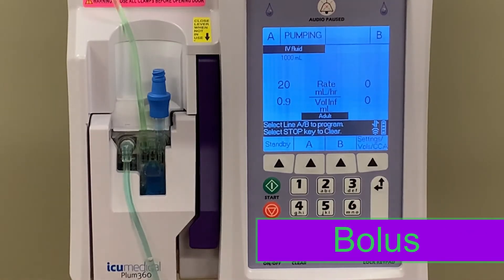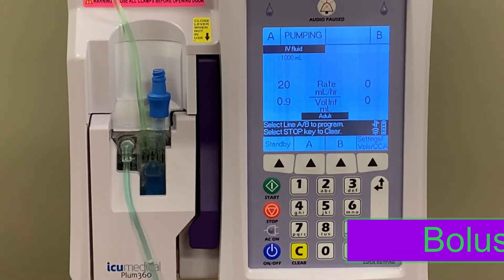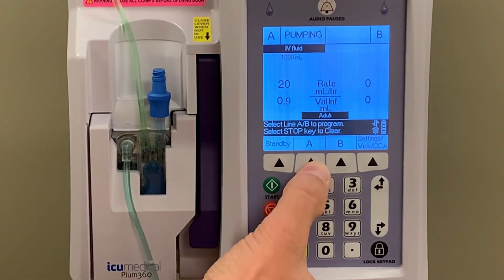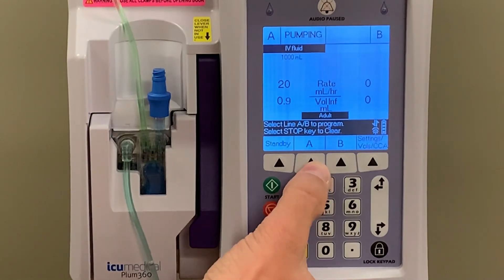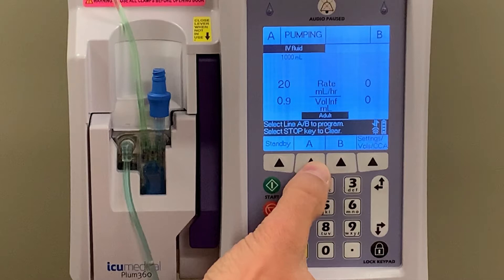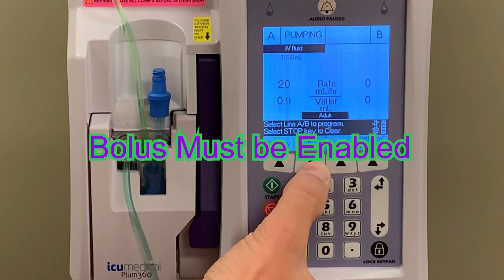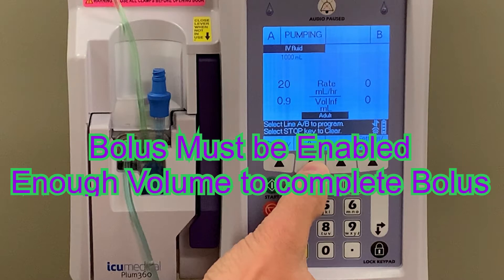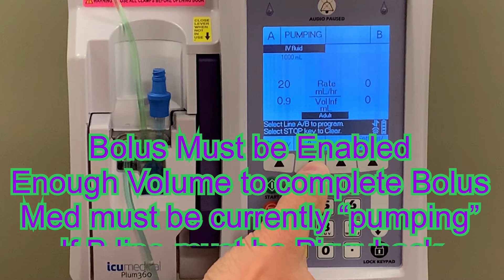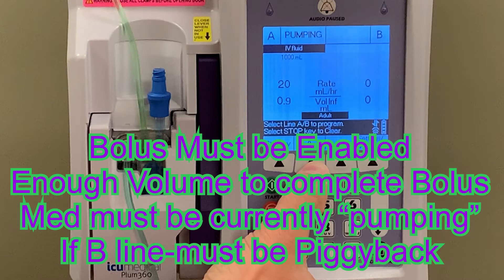During administration of some medications, you may find situations where the patient requires a bolus of the fluid or medication that is already being delivered. With medications where this is appropriate, the Plum360 will have a bolus option available. This can be delivered through medications attached to either the A or B line, as long as certain criteria are met. Bolus delivery needs to be enabled for that medication within the drug library. There has to be enough medication left in the bag to deliver the entire bolus. The medication needs to be currently running, and if the medication is running through the B line, it must be programmed in the piggyback mode, not as a concurrent mode.